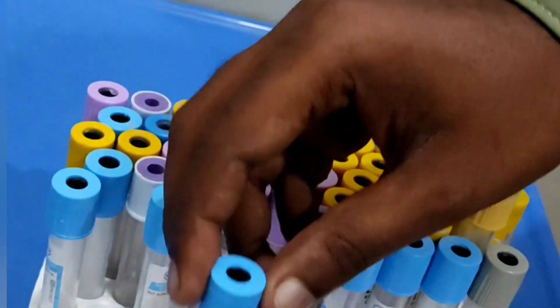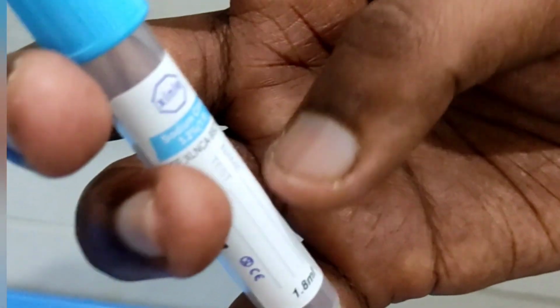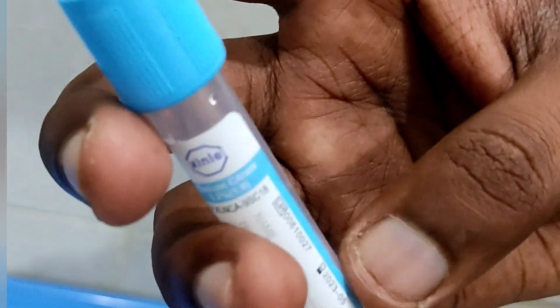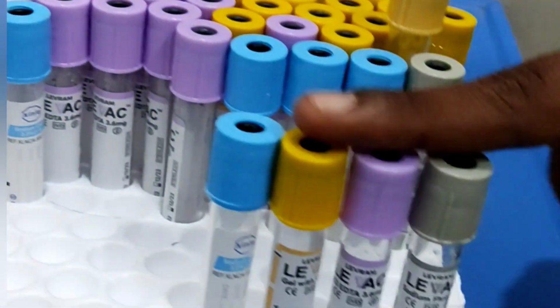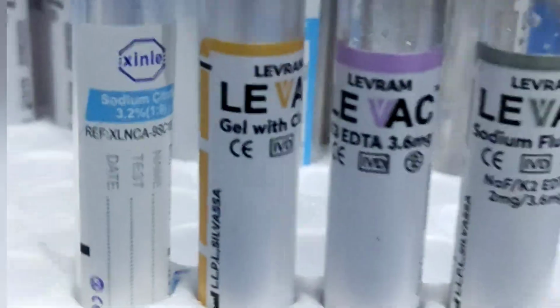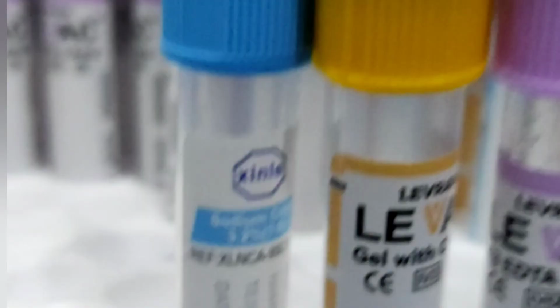Contagious diseases such as AIDS and hepatitis, which are caused by needle sticks, can be prevented by wearing protective clothing as well as gloves. These are some of the specific instructions we must follow while performing the phlebotomy procedure as well as while handling the test tubes.